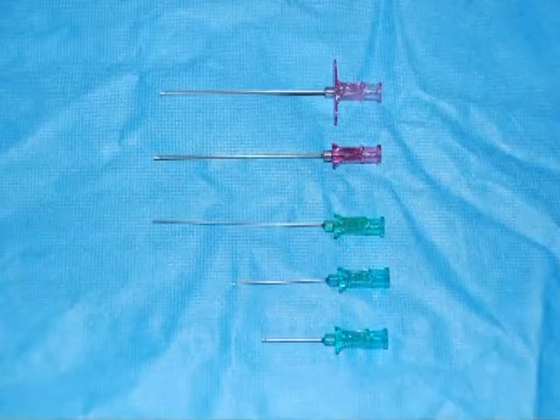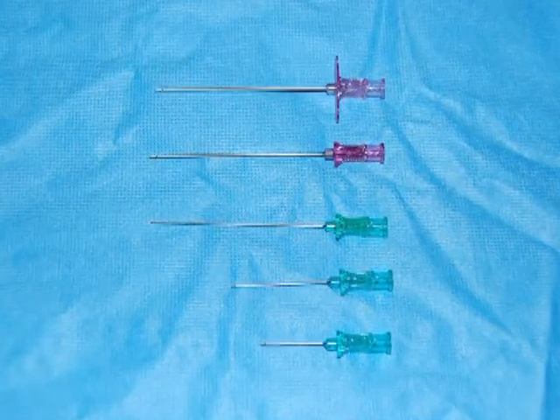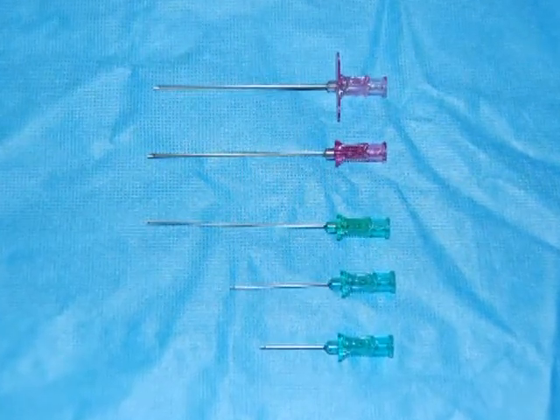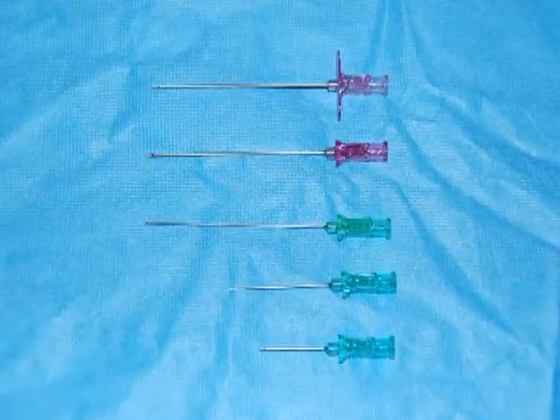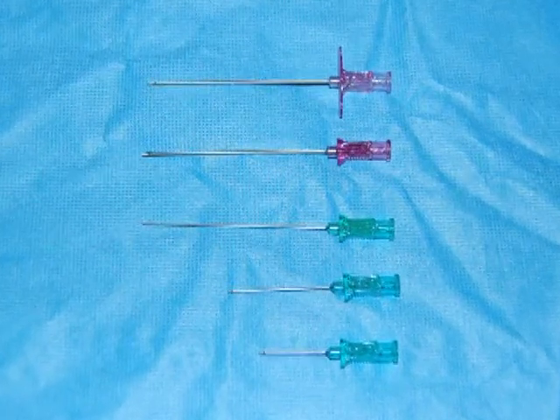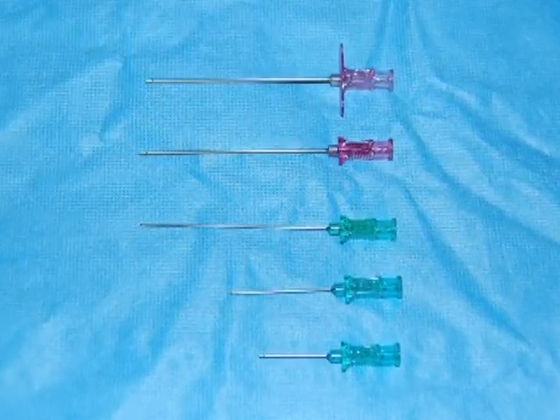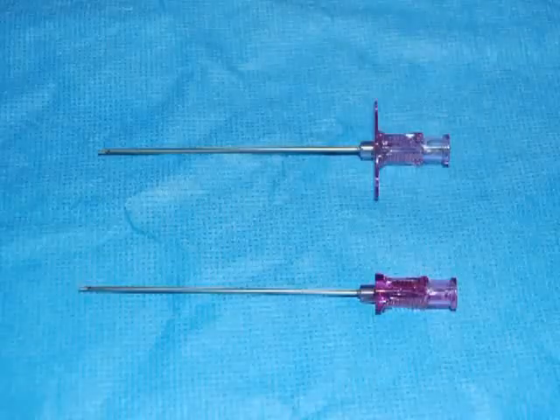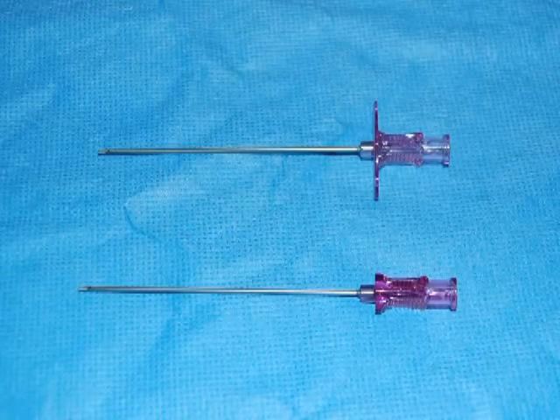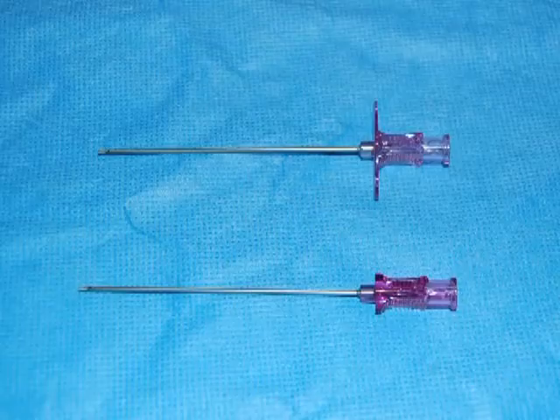In general, the brachial artery should not be an access site of first, second, or third choice. For the access site needles for the femoral artery, it is common to have a marker on the plastic hub indicating which direction the bevel is facing.